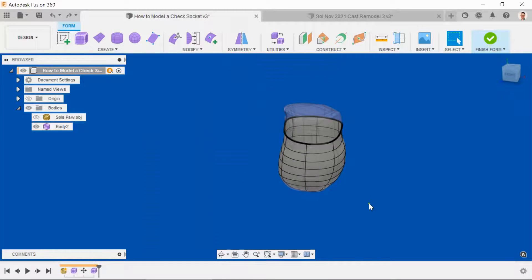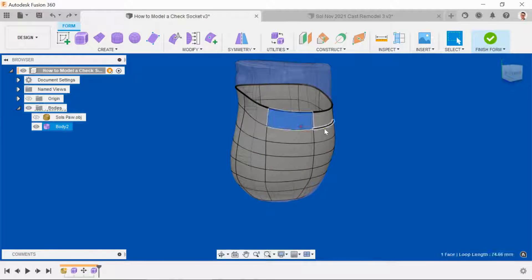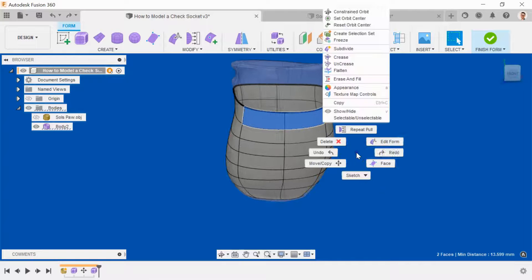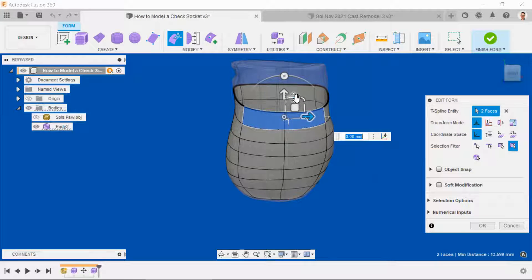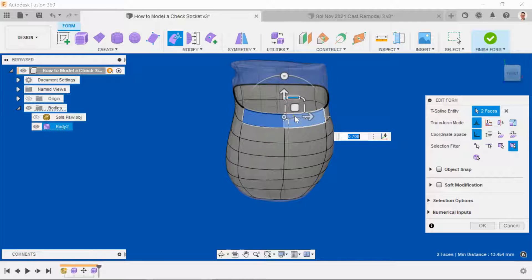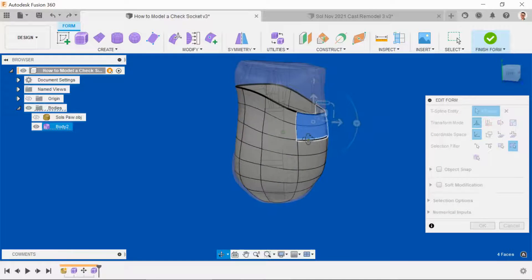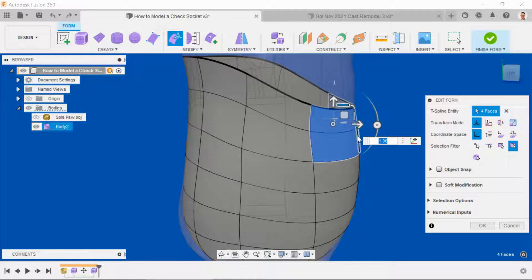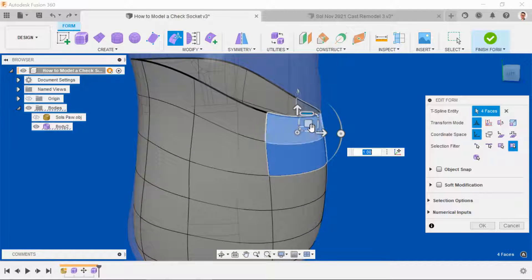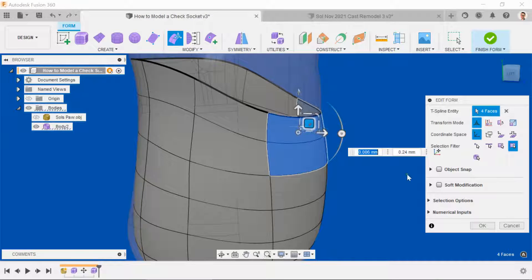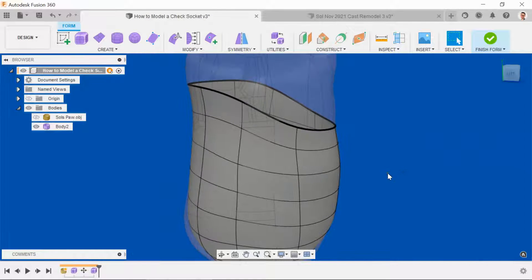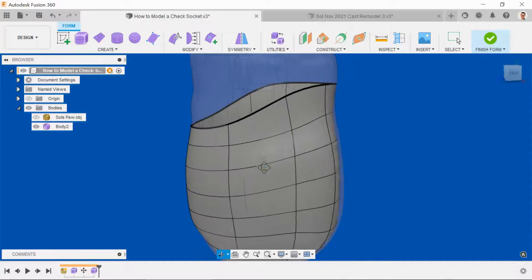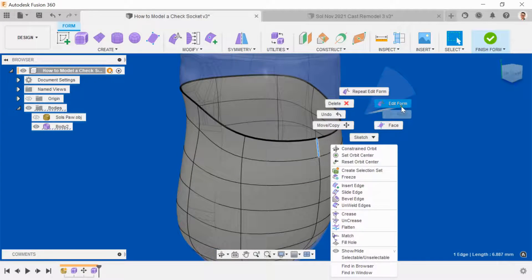I don't think Sol would be able to get that on his arm because of the gap at the front. So I'm going to try and modify that now so that the gap was large enough. That looks better to me.